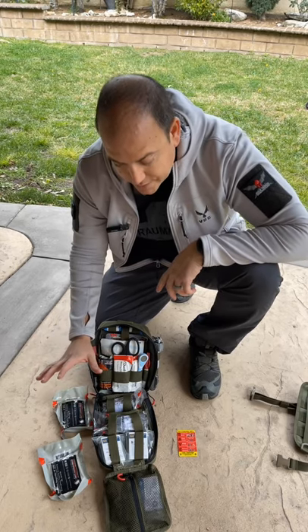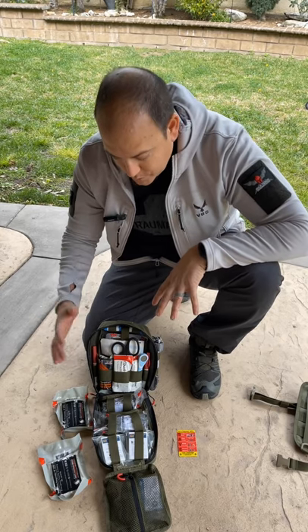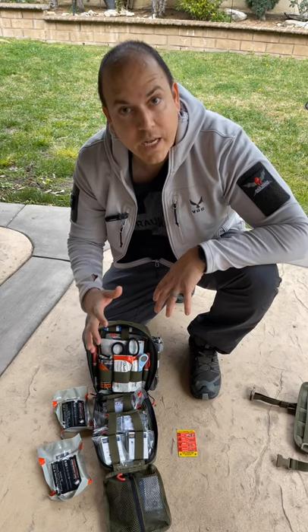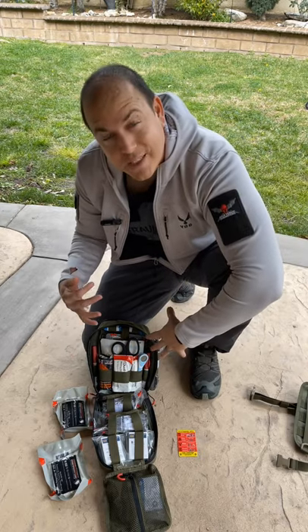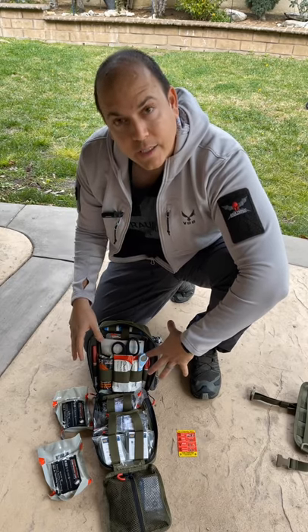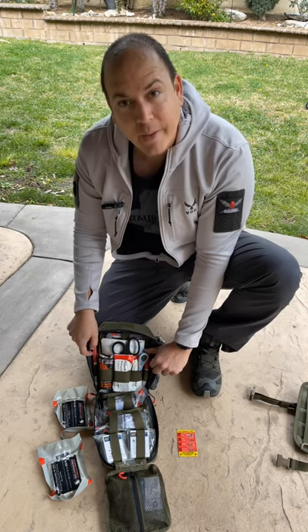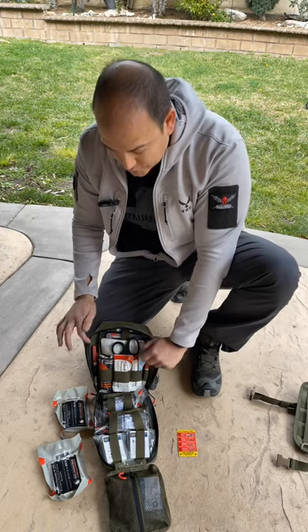We're still on the bleeding phase, and now we're moving to airway. Whether it's the human or the canine, if there's a chest injury you need to address the airway — for an adult, placing them on their side. For the canine, it's important to control the airway and cover any holes in the torso, both for human and canine, and decompress as needed. This is why there are two needles — one for the handler and one for the canine — and also because it is recommended to decompress both sides of the canine's torso, not just the affected side.